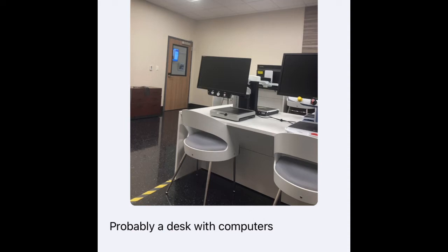Explore photo button. This is an exploratory channel and also very experimental. What it allows you to do is explore the photo you just took with your finger. It tries to use spacing to illustrate where an object is in the photo, as when you look at the photo visually, the chair would be on the bottom, for example, with the CCTVs on top of the tables. So let's give this a look, but again, it's another experimental feature and one that should not be taken overly serious just yet. Explore photo.